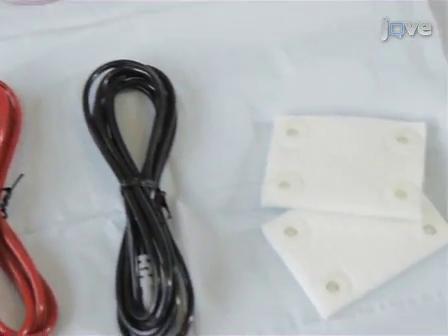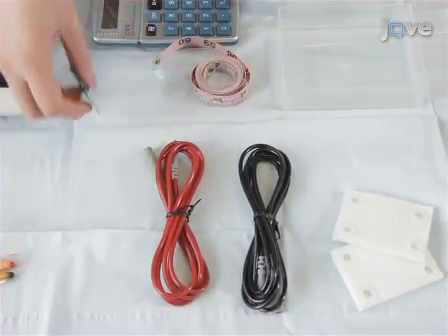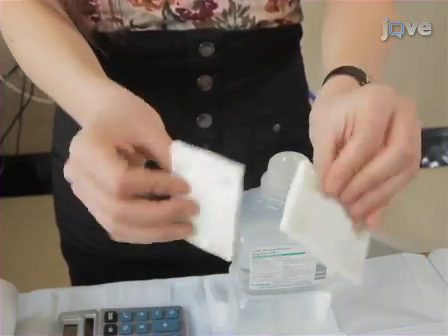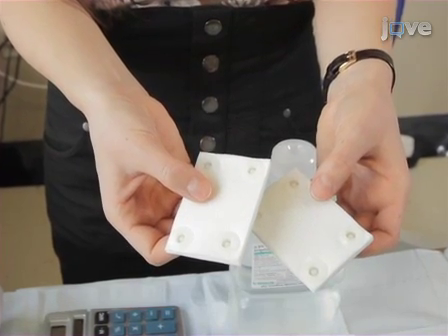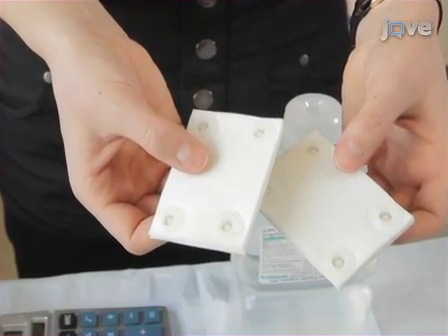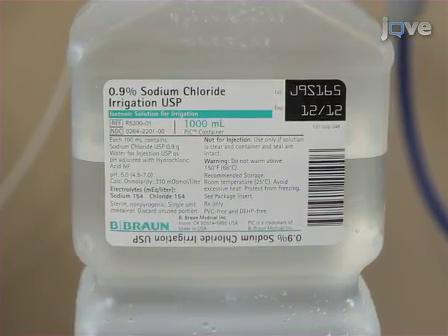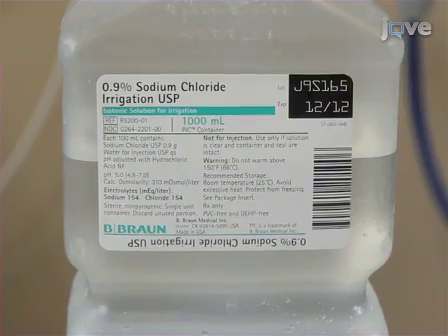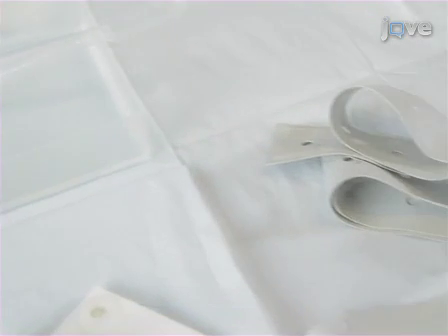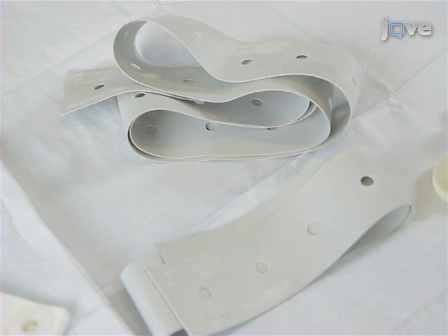The electrodes used for tDCS are generally conductive rubber electrodes enclosed in a perforated sponge saturated with electrolyte fluid. If reusable rubber electrodes are used, be sure to inspect these for wear before use. It is recommended to use perforated sponge pockets that are not too coarse, as these best absorb the electrolyte solution and provide uniform skin contact, while buffering the skin from electrochemical and pH changes. Sodium chloride solution in the concentration range of 15 to 140 millimole is recommended to assure patient comfort while minimizing stimulation voltages. A tape measure will be needed to locate stimulus locations, and elastic or rubber head straps to position the electrodes. It is important to assure that the straps are made with non-conductive material so that they do not increase conductive area if they get wet.